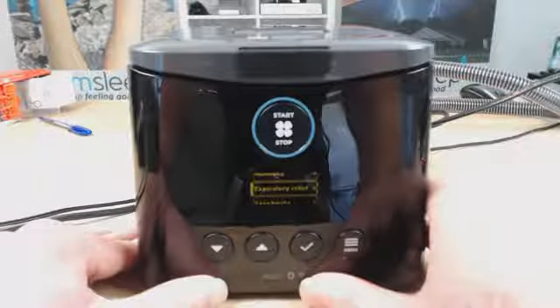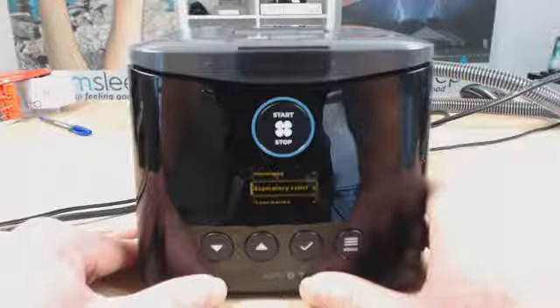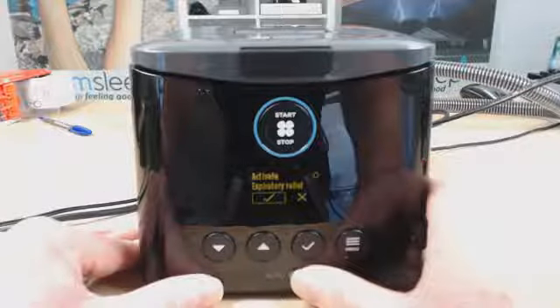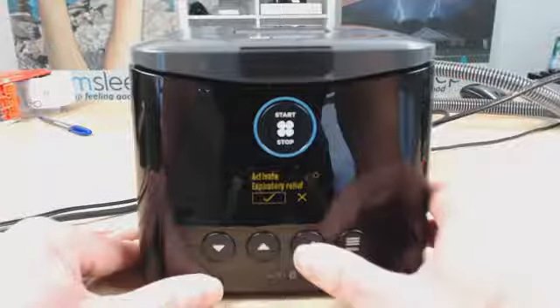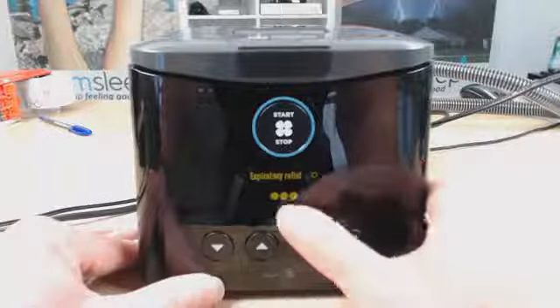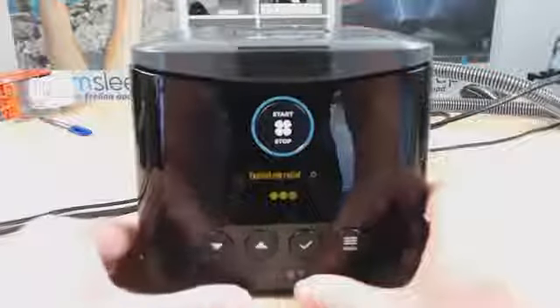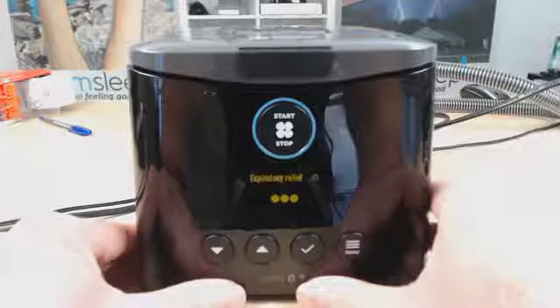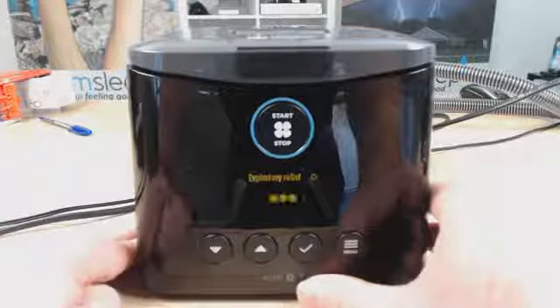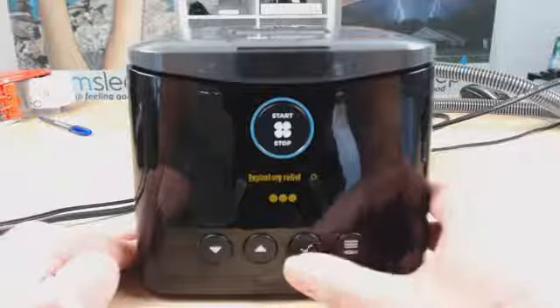Go down again. Expiratory relief, so this is the relief settings. At the exhale relief settings, as you breathe out, the machine will drop the pressure. So we can activate it or deactivate it. We'll leave it activated there. Remember, these are clinical settings, and we'll keep that on 3 for now, but we can bring it down if you're finding that it's throwing off your breathing or you're finding it a little bit funny with the exhale relief. But it's like everything with CPAP, trial and error. Try the different settings. See how you feel. Breathe with the machine for a bit. If you like it, great. If you don't, change it.